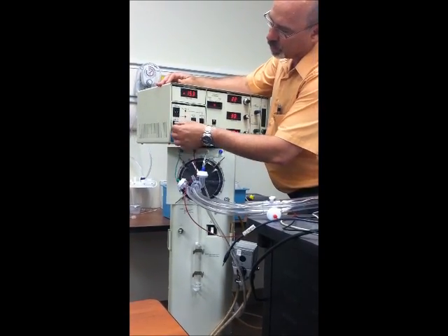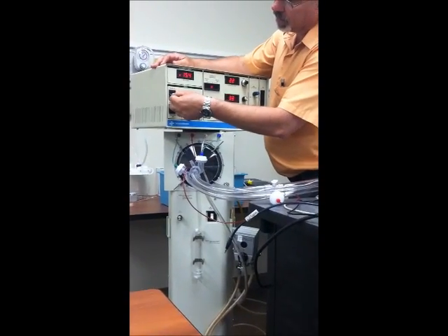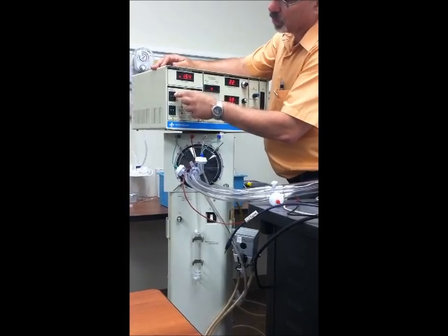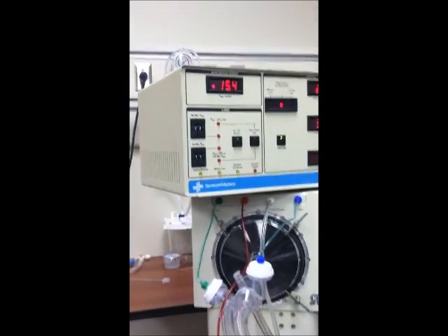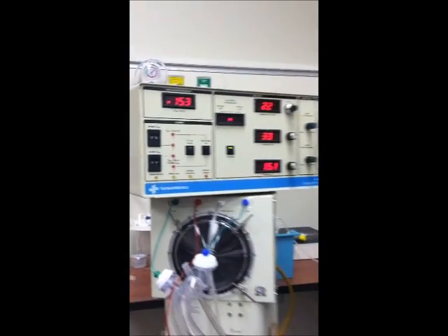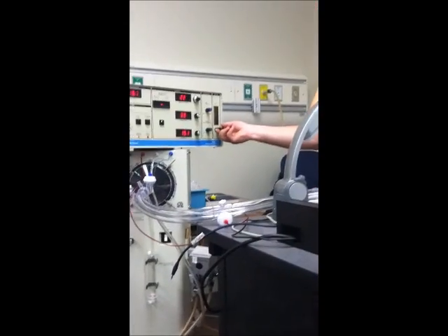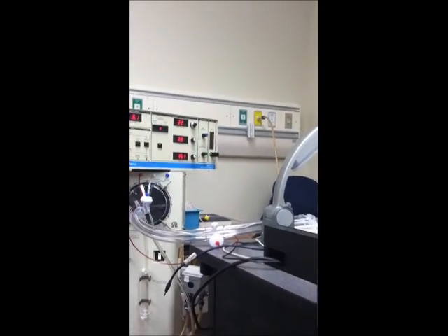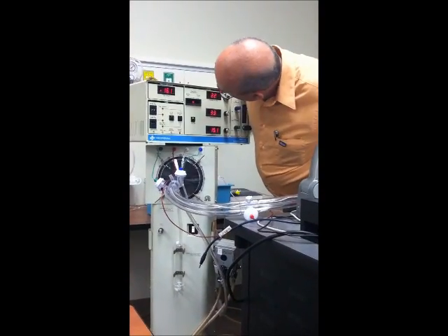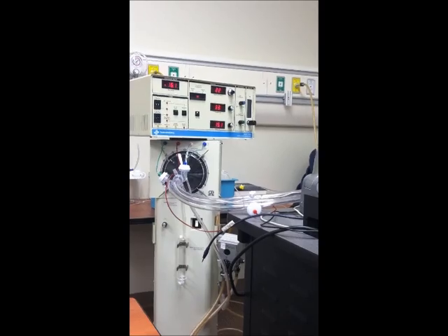I might turn this one up to 11, and maybe this one up. So that we change it, we'll put it at 23. And I'm probably going to use, just to show you, our bias flow to go up to get it. We actually get a pretty good jump with that. How's my piston? Maybe just a hair, not even worth trying to fine tune.